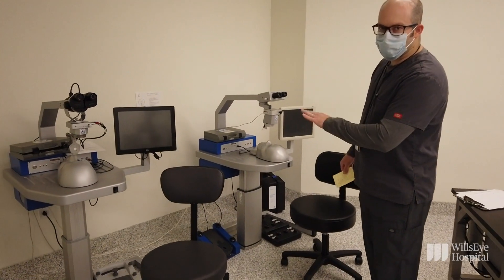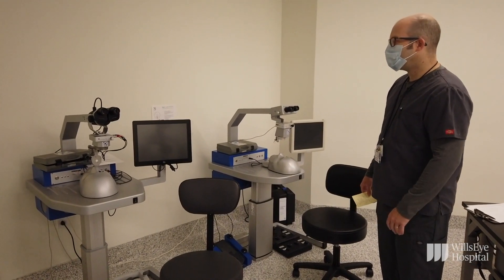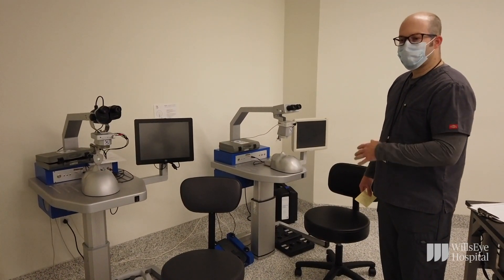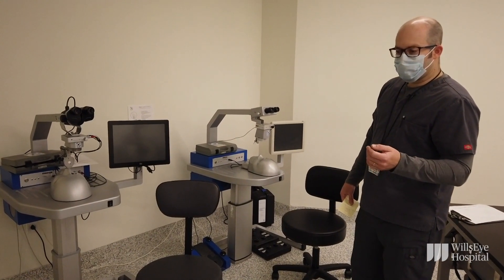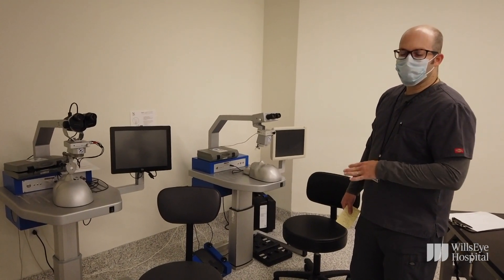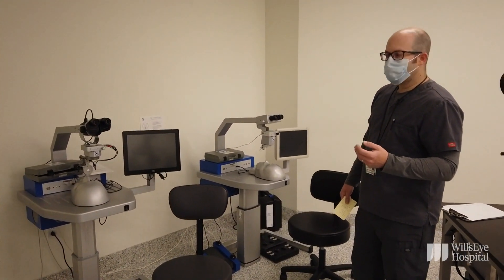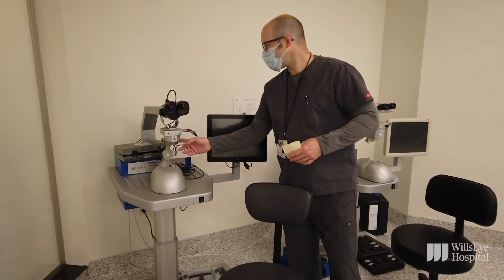Both simulators are networked internally as well as to the cloud. The purpose of that is to give different levels of trainees the ability to compare their progress to people within their own residency as well as to others at their same level throughout the rest of the world. Each user has a unique user ID and password to access the system. It's important that you use your own login information and not another user's, because otherwise it will influence the database.